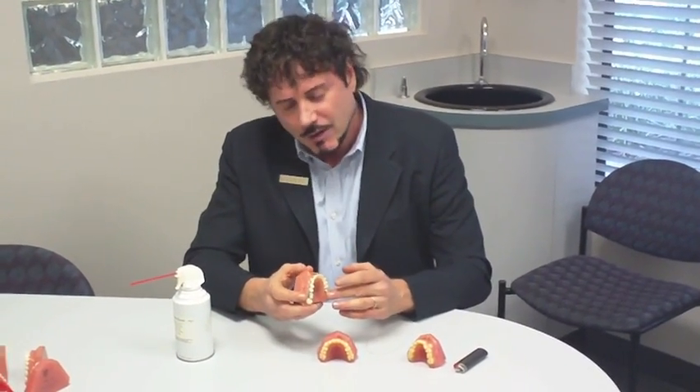As I explained earlier, orthodontics is a system of very, very small metal squares called brackets, which we simply glue into your teeth. Once we have them on your teeth, how do teeth move?